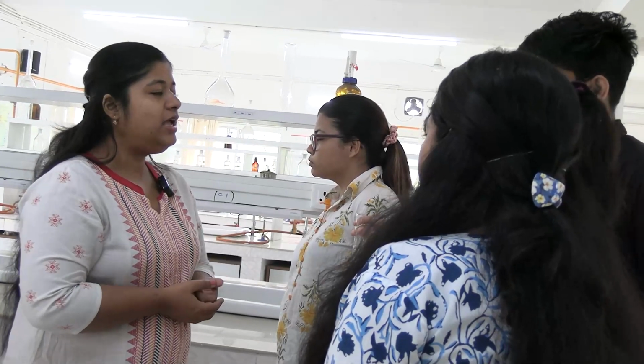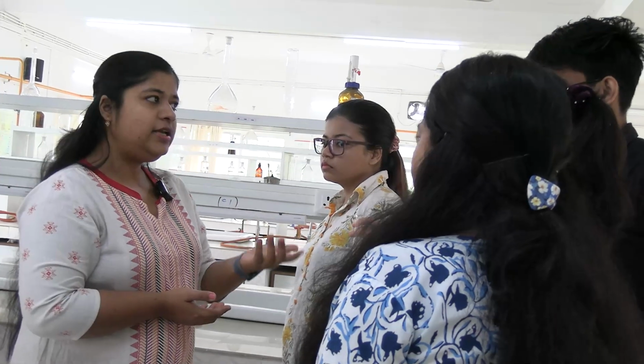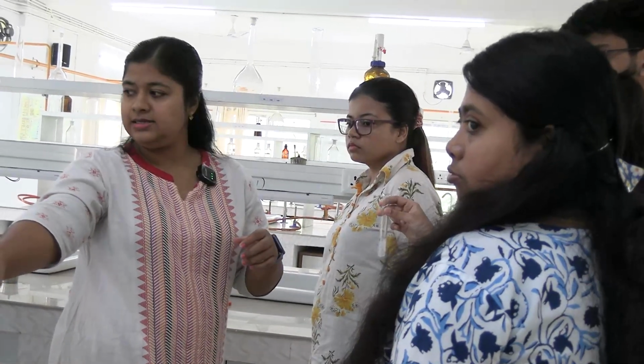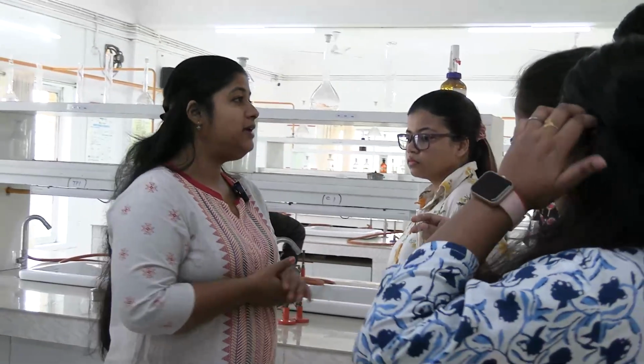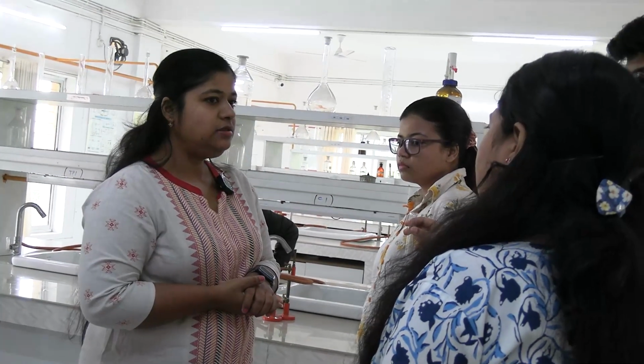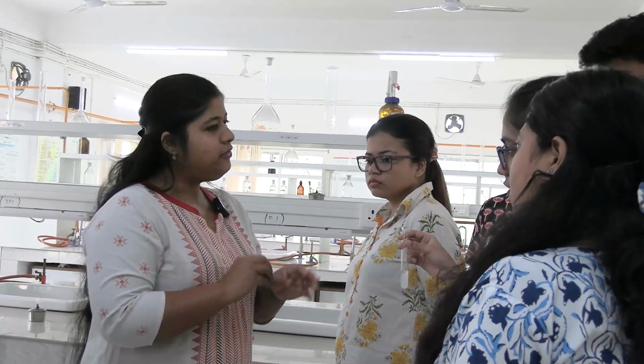Okay, and why are we adding glacial acetic acid? We got flocculation with heat, coagulum has appeared. Now add 2 drops of glacial acetic acid, just 2 drops. Why? Is there any other substance that can give coagulation on heating? That is phosphate and carbonates. Phosphates and carbonates can also give such white coagulum on heating. To confirm proteins, we add glacial acetic acid. If it is phosphate or carbonate, it will be dissolved.